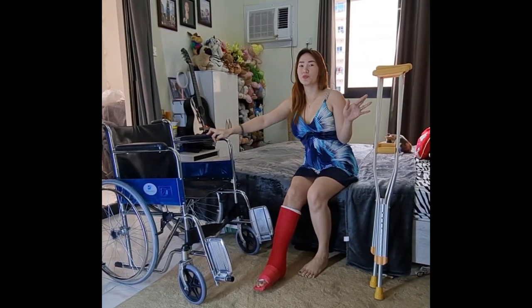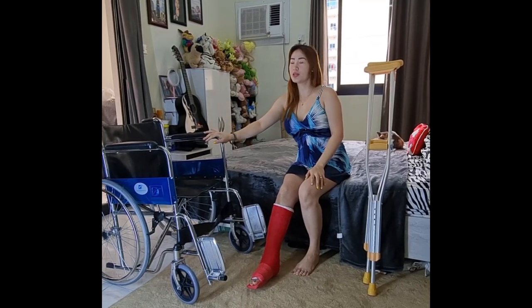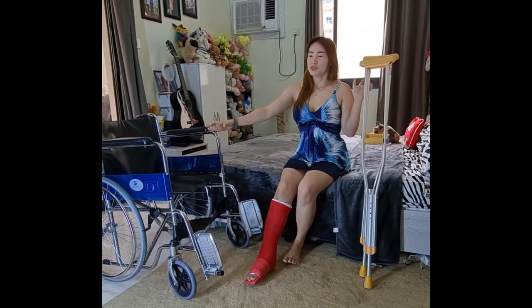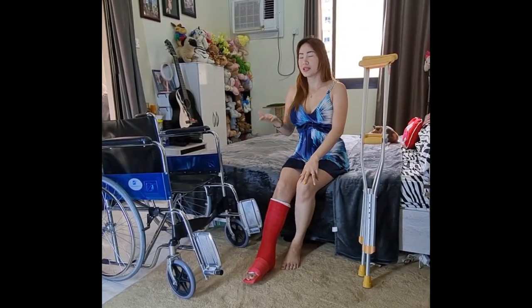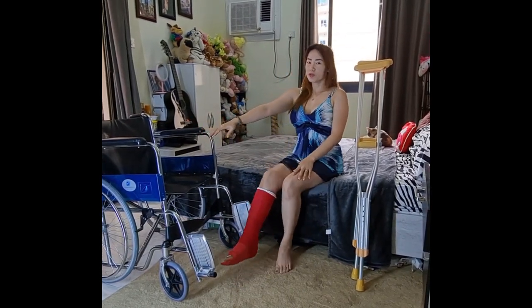If I'm going to the bathroom or kitchen, I'm using one of two pieces of equipment — as you can see, I'm using a wheelchair and crutches. This is only safety tips based on my own experience. So I'm going to teach you.